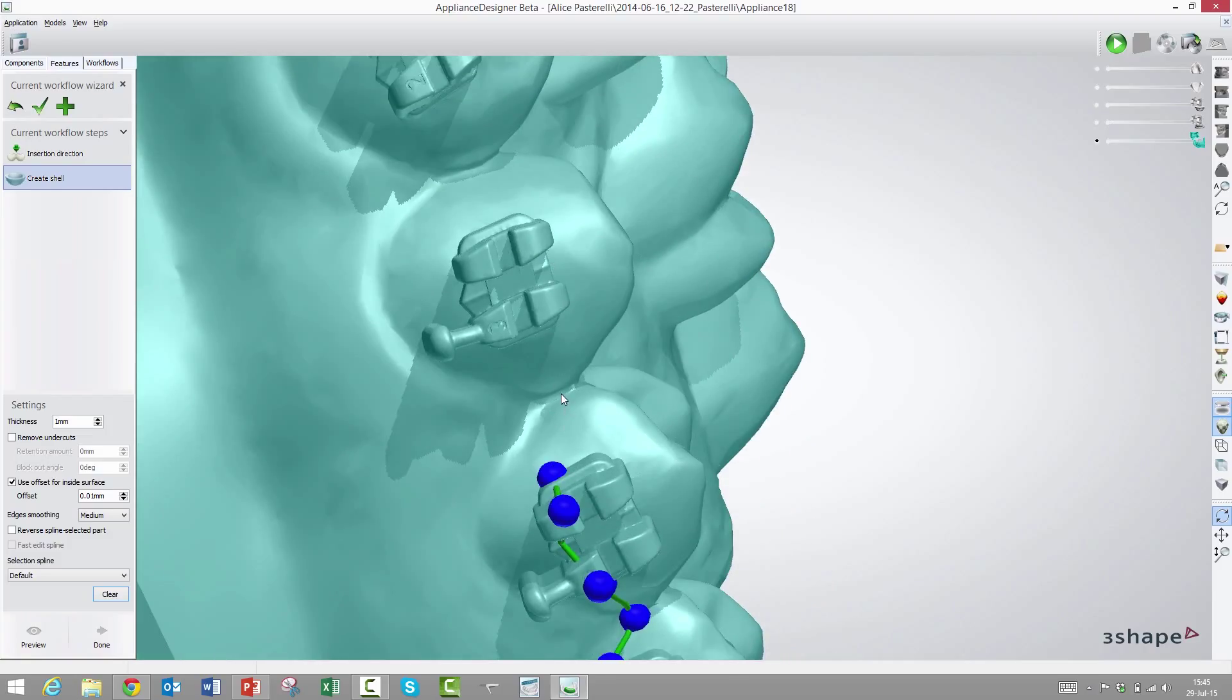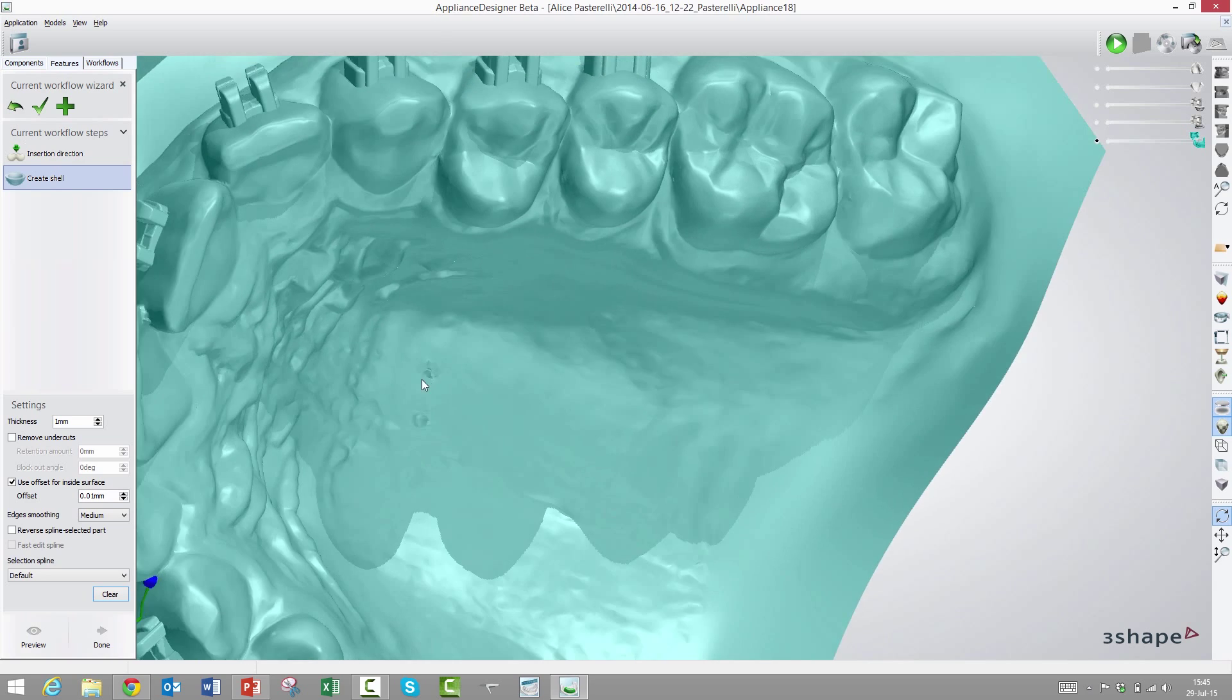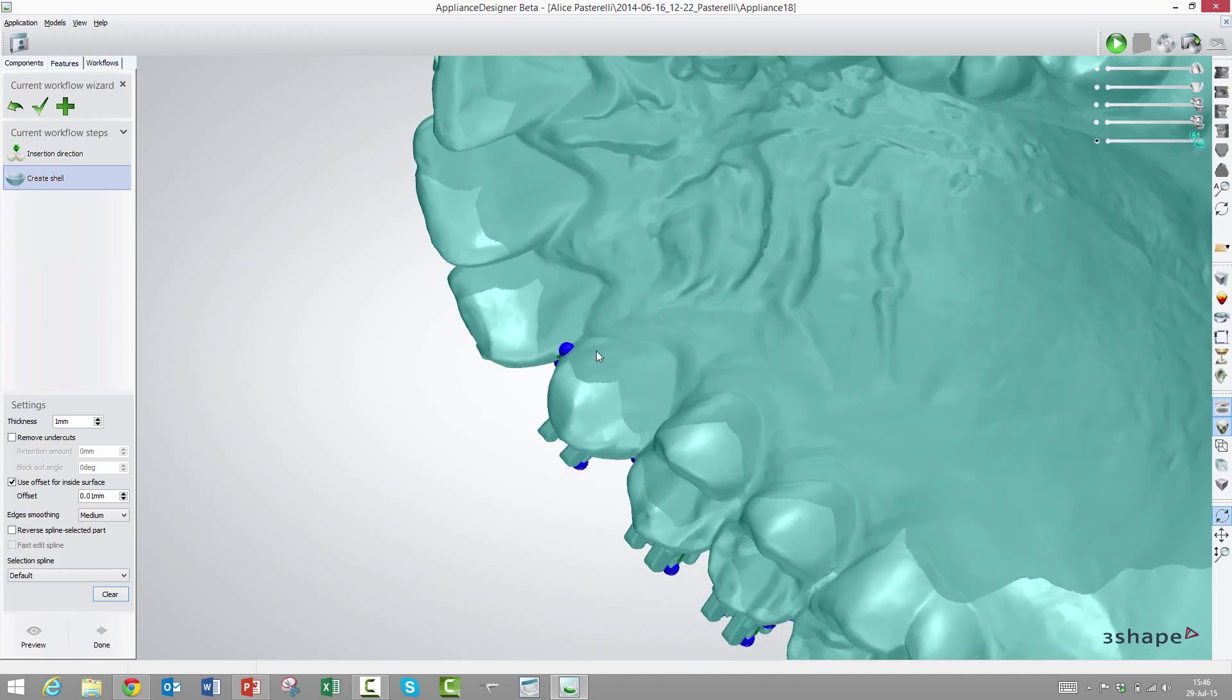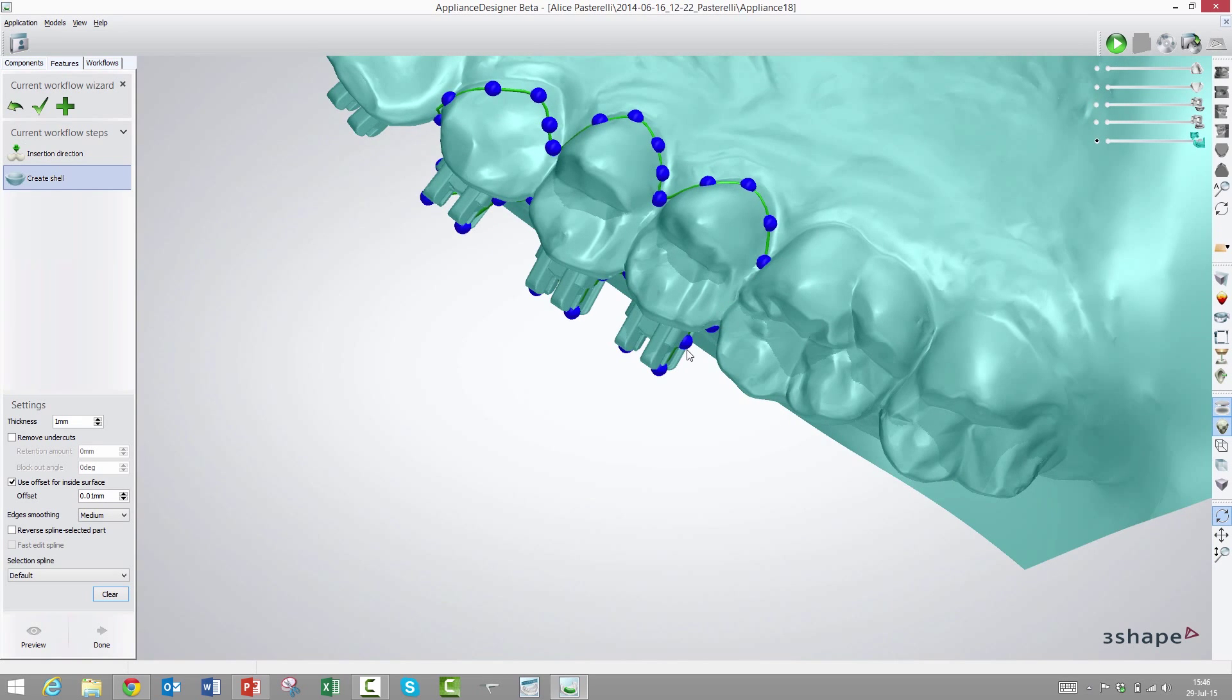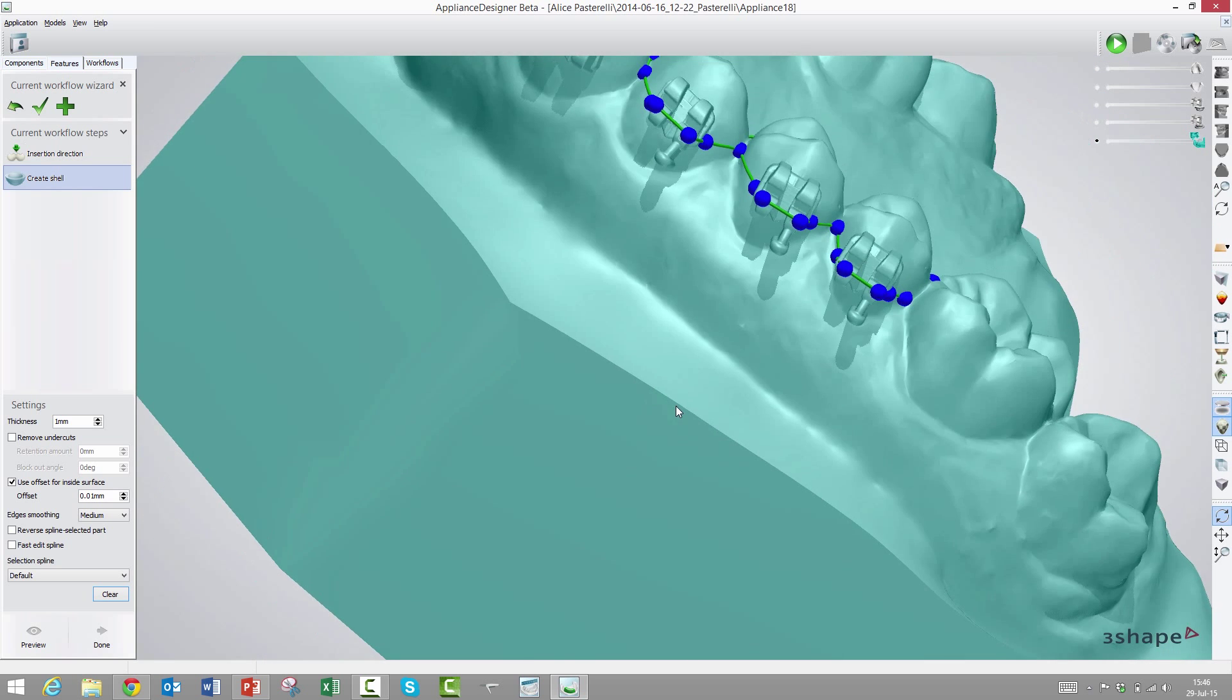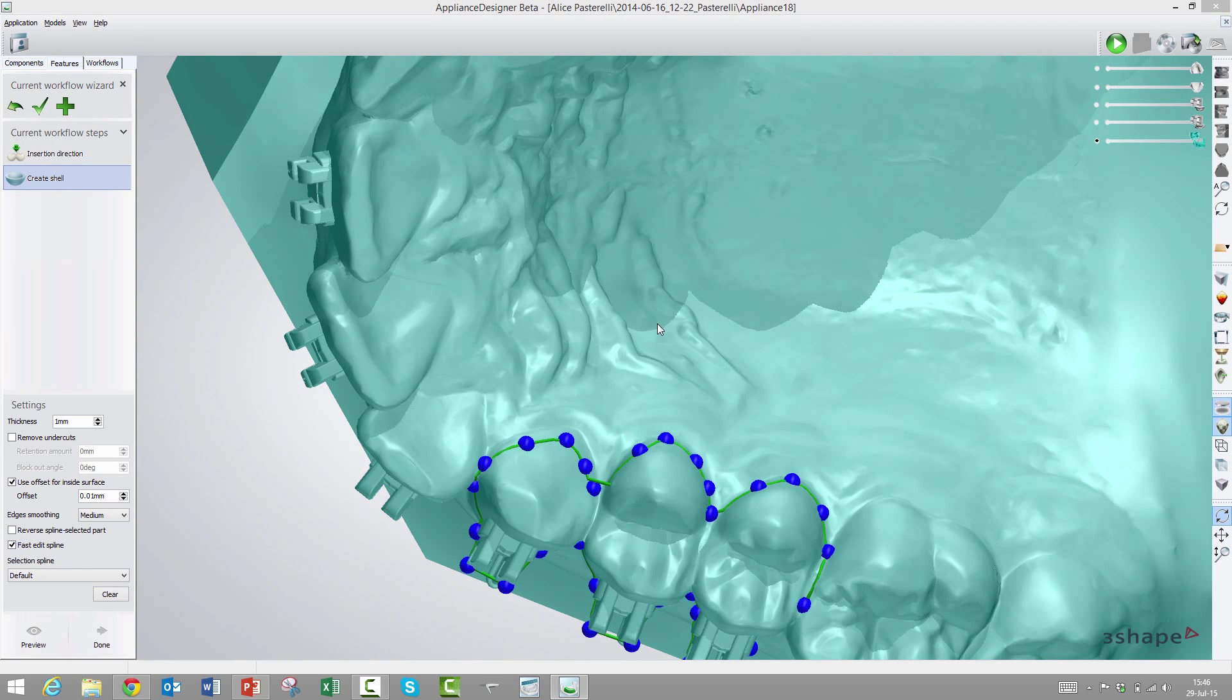Let's try tracing along the bracket edge here. That would be the lower edge of the transfer tray. I won't do the entire thing, just three or four so you'll get the idea. Now we will make the other edge of the transfer tray. This would be a fairly soft material. We've seen prototypes already and it's sort of a hard rubber property. We could even make it grip around some undercuts here on the back and it will still be able to let go.